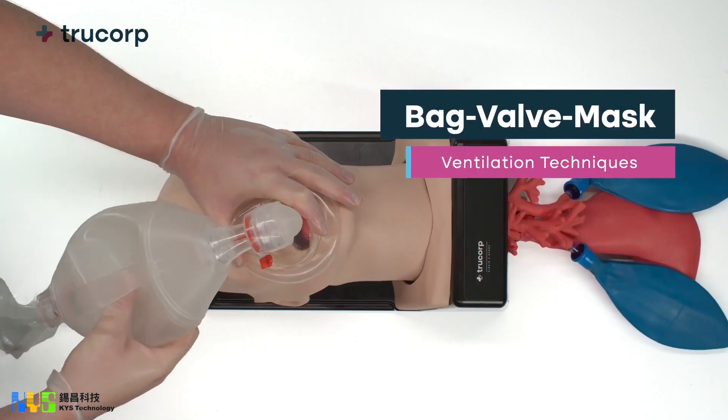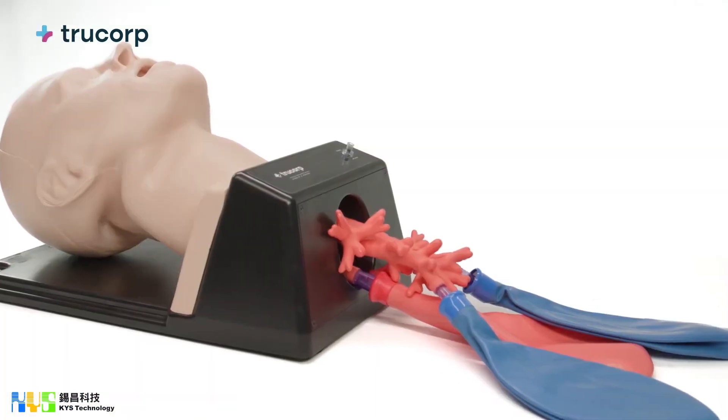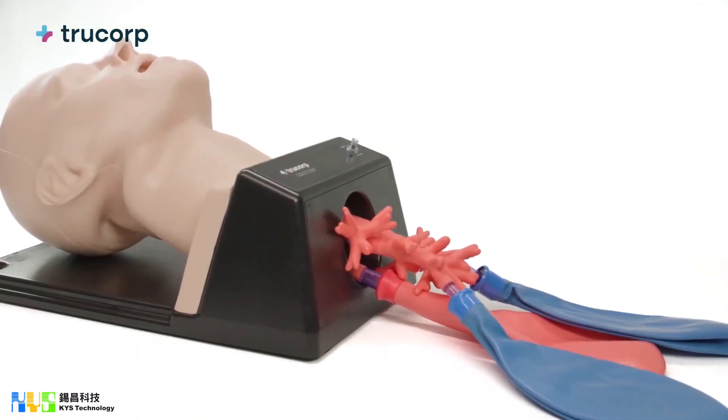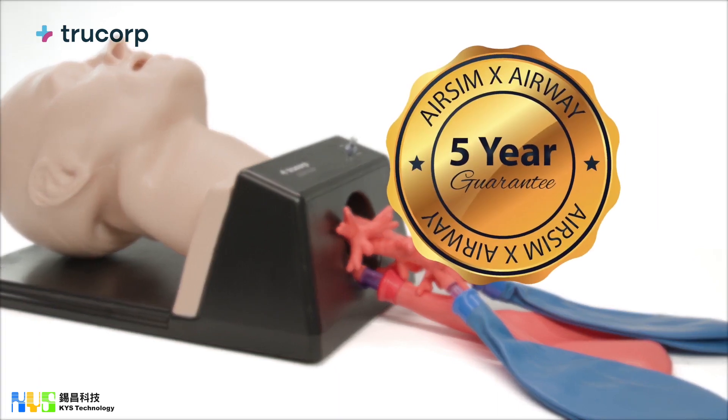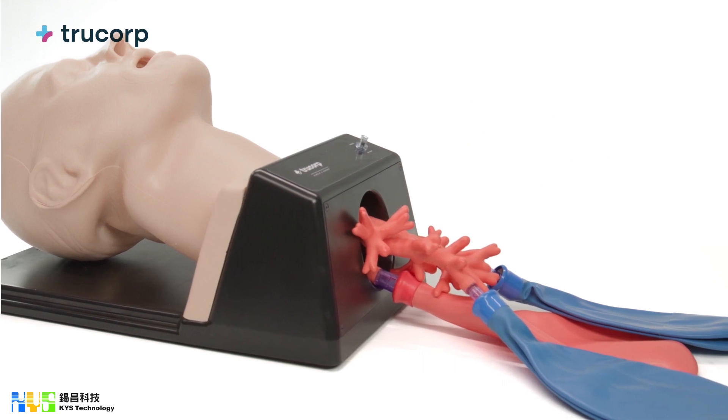And also bag valve mask ventilation techniques. This model is part of the AirSim X range which provides realistic and durable training and comes with a five-year warranty on airway and one-year warranty as standard for all other parts.